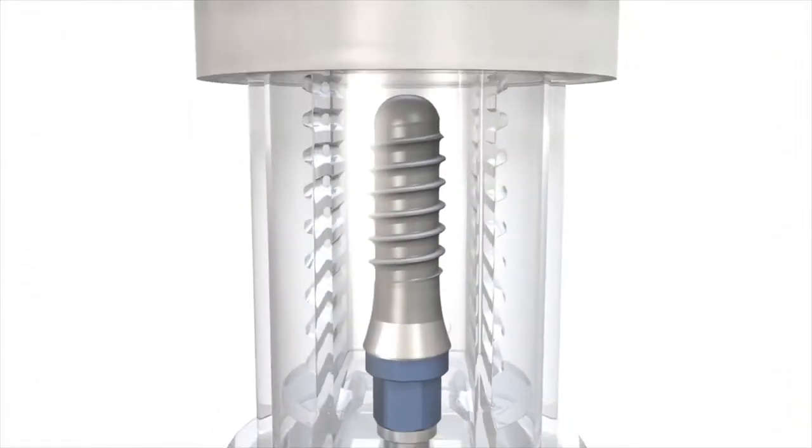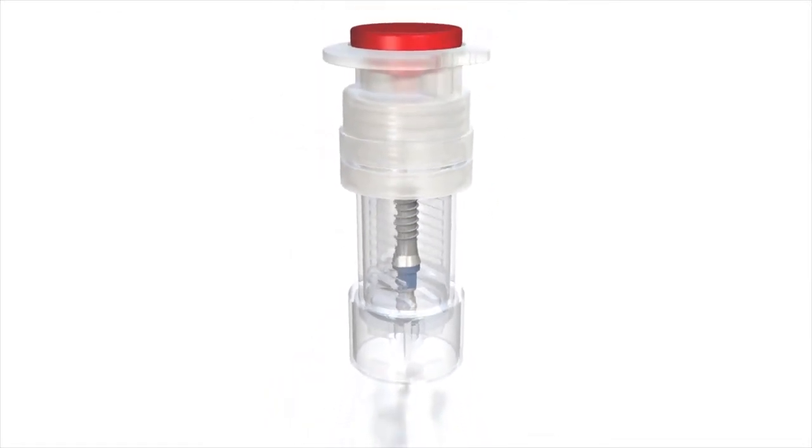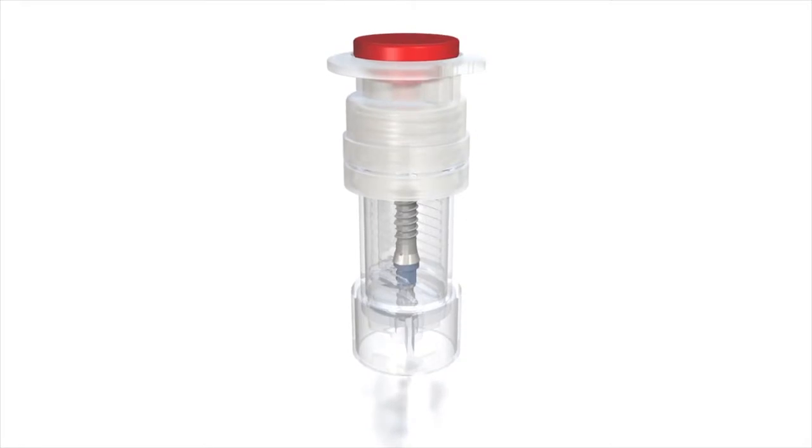A special plastic vial has been developed, allowing implants with SL-Active to be preserved in their activated state until used by the dental professional.